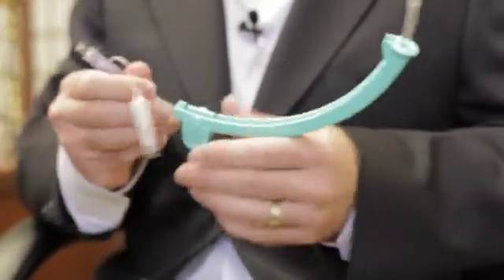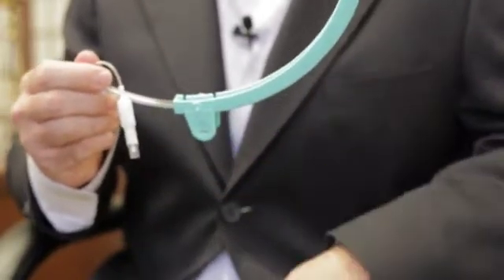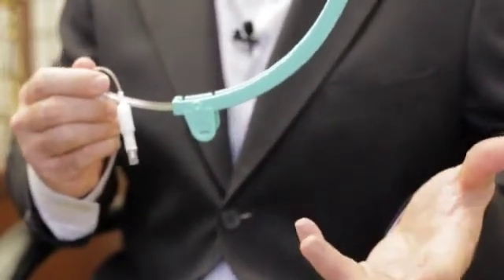We also have the pinch grip handle, which physicians are used to, and this allows them to quickly and easily reposition during the procedure.